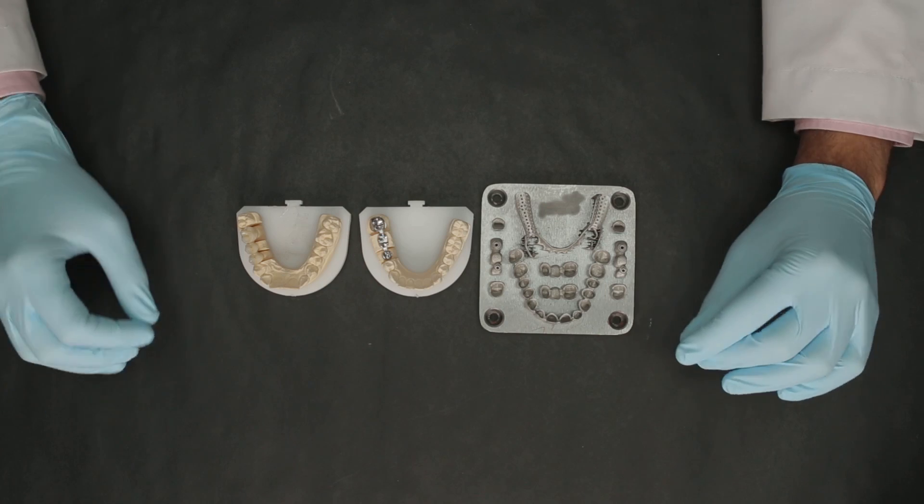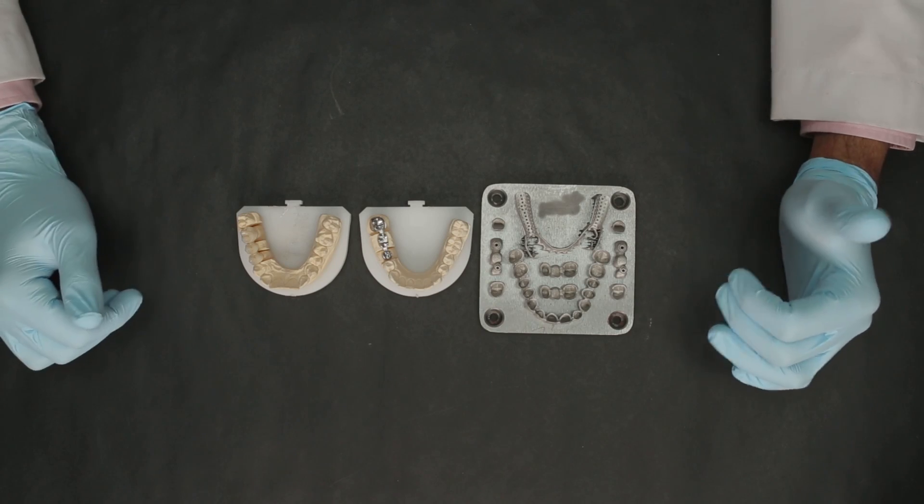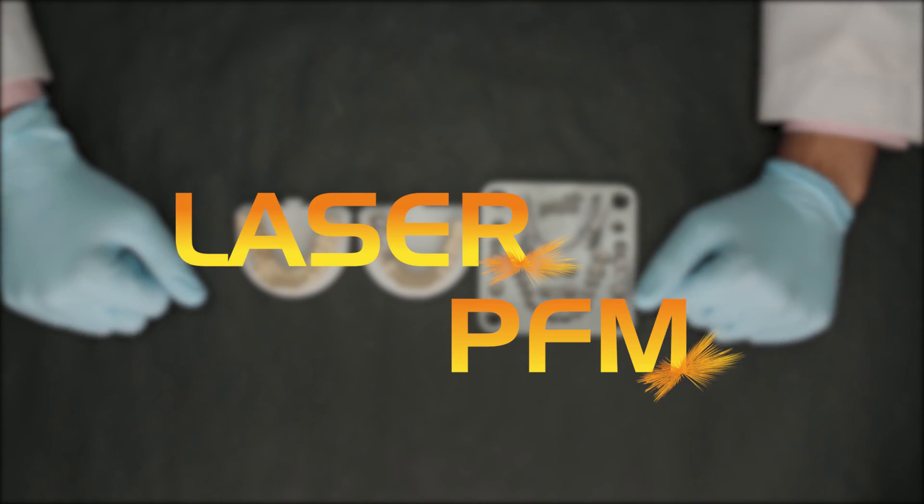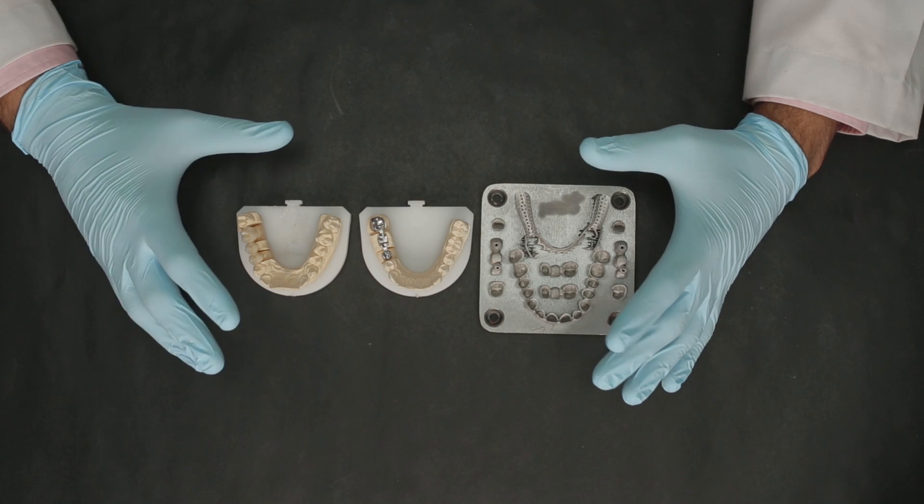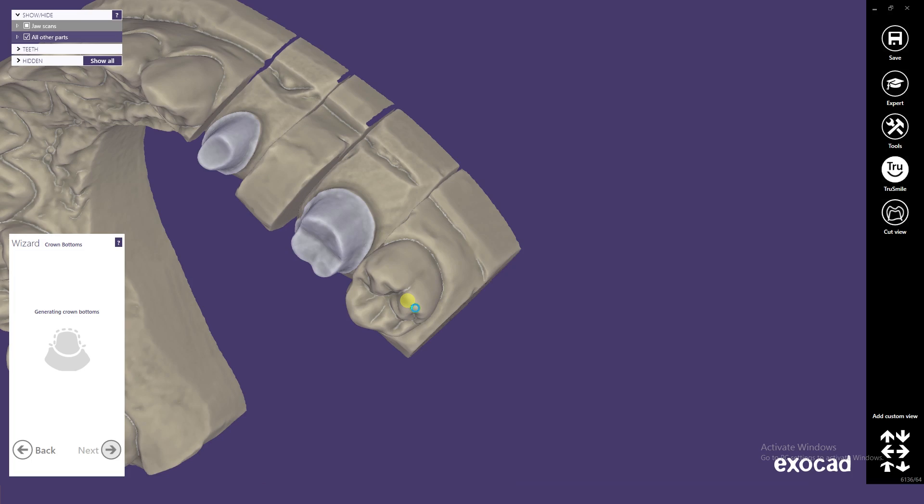Hello everyone, welcome to Illusion Training and Education. In today's video, let's take a look at Illusion Dental's product of the week. This is yet another advancement that Illusion has adopted in the PFM line of products. It's called the Laser PFM. It is basically sintered using the DMLS technology, which stands for Direct Metal Laser Sintering. The framework is first designed using CAD, and this design is then sent to the DMLS unit where the sintering happens.